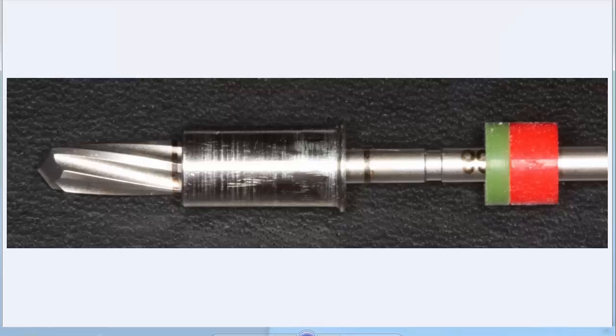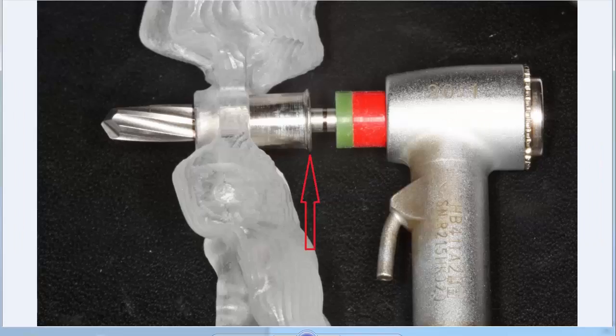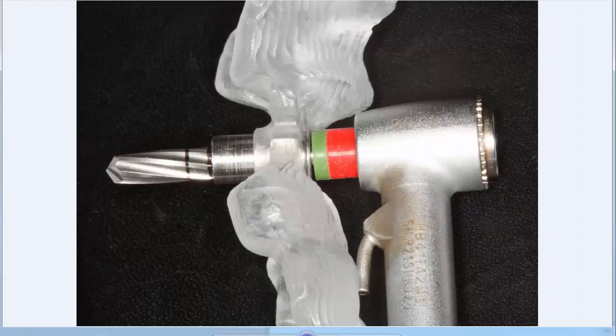The new version of the drill stops looks a little different. You can see that it sits on the drill and is able to slip up and down until it contacts some silicone stops that you place on the drill — that becomes your vertical stop instead of the hub of the handpiece. There's also a lip on the end of the drill stop which will engage the new guide. Once the drill stop slips up the drill, it makes contact with those silicone stops. The drill stop fits passively within the guide, and once you insert it, you keep pressing down until the lip makes contact with the silicone, and that controls your vertical.